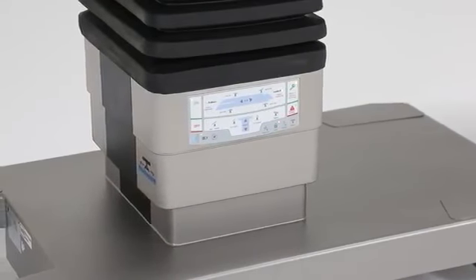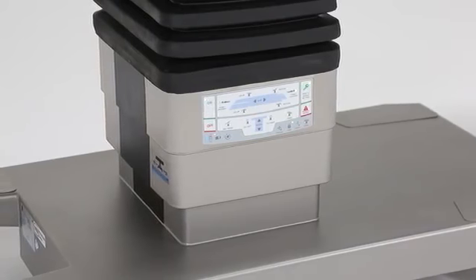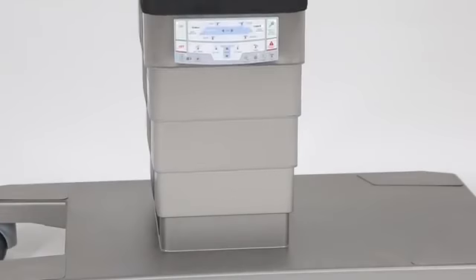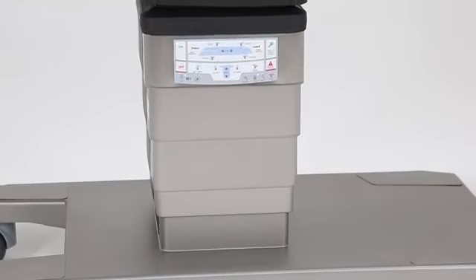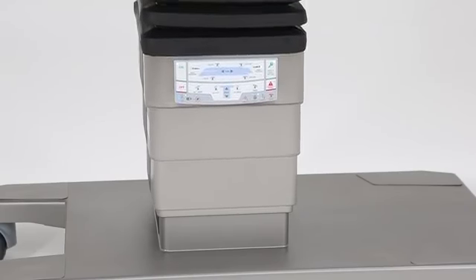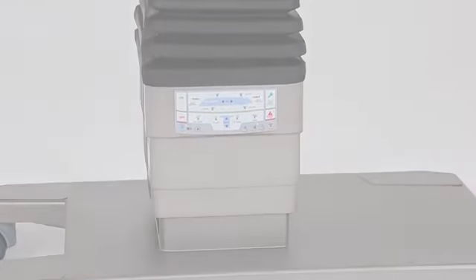The two-stage column gives Trumpf the industry-leading stroke of height, meeting any surgical demand, including laparoscopic, robotic, and orthopedic surgery. The column was designed to do its job so you can stay focused on the patient and perform yours.